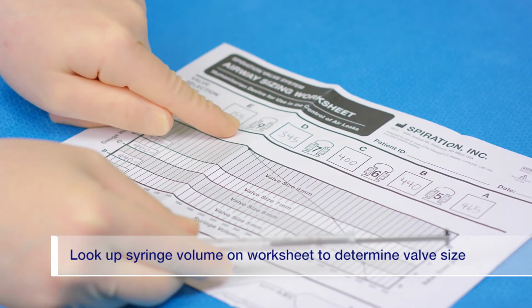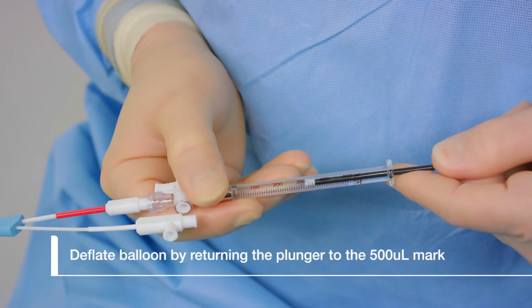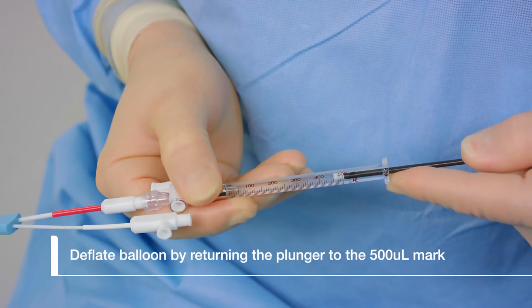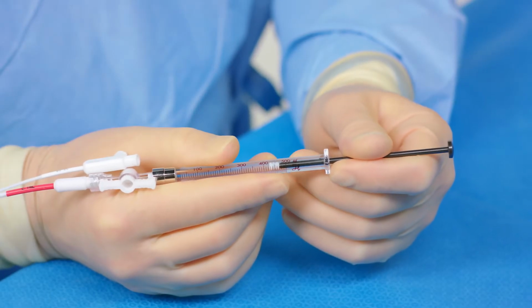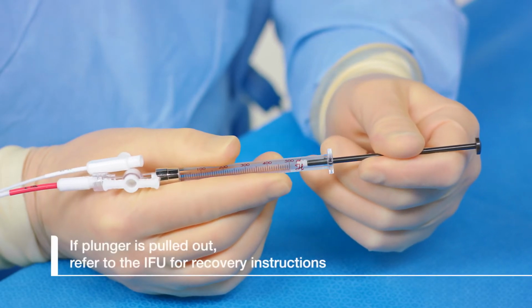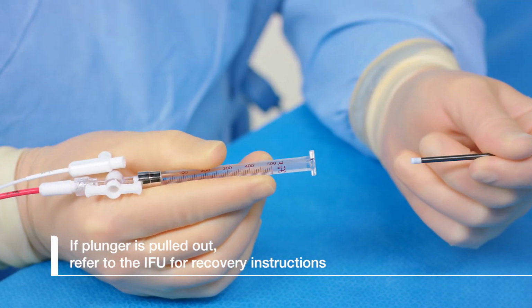Before retracting the balloon inside the bronchoscope, fully deflate the balloon by returning the plunger to the 500 microliter mark. Take care not to pull the plunger beyond the 500 microliter mark. If the plunger is pulled out, refer to Section 8.4 in the SVS Airway Sizing Kit IFU for recovery instructions.